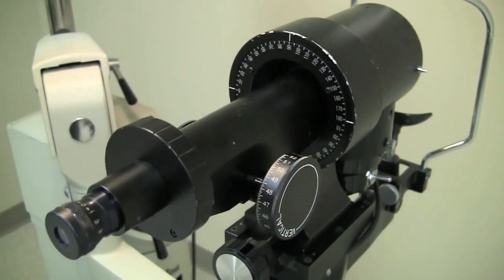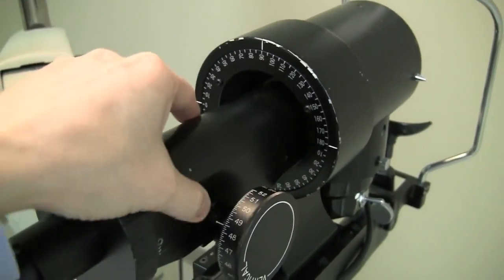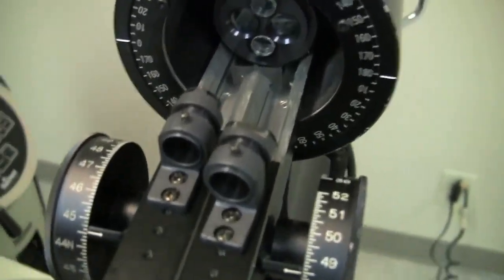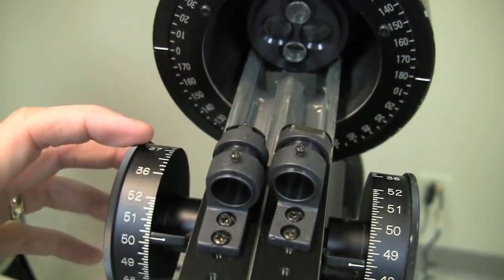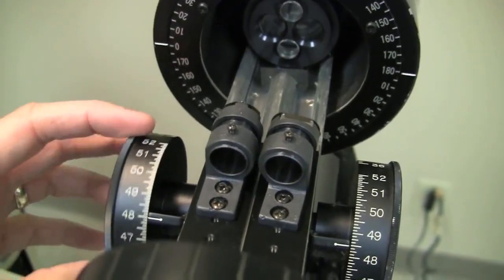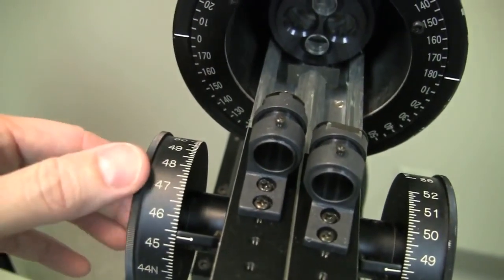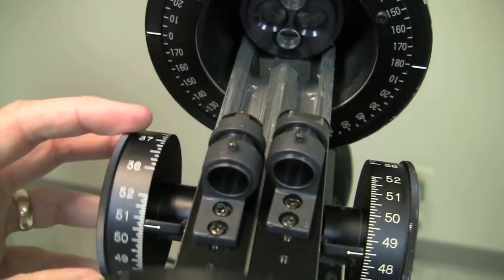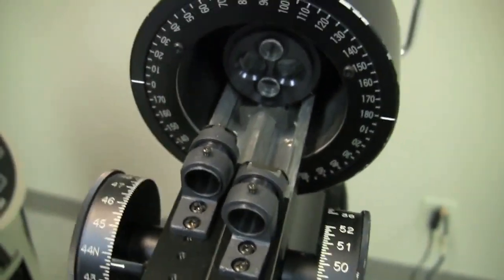Now the most ingenious part of this instrument is actually what's going on under the cover. So I'm going to take this black cover off here to show you what it looks like inside. And what you can see here is that we have these things on sliders. Watch what happens when I turn the power knob. If I turn the power knob here, you can see that this moves back and forth, closer towards the patient and farther away from the patient. Notice that the numbers go to higher and higher dioptric values, or shorter radius of curvature values, as I move this towards me, and lower numbers as they go towards the patient. That won't make a whole lot of sense yet, but that's what happens.